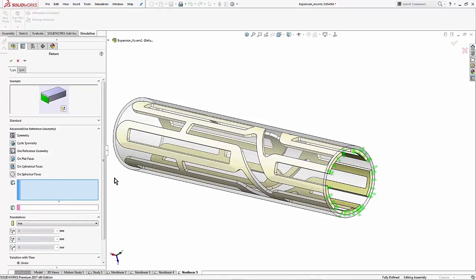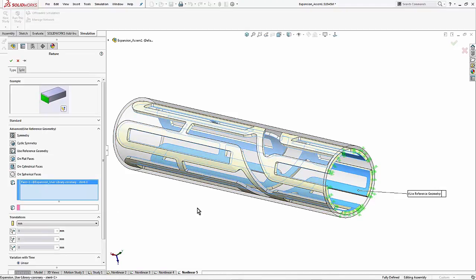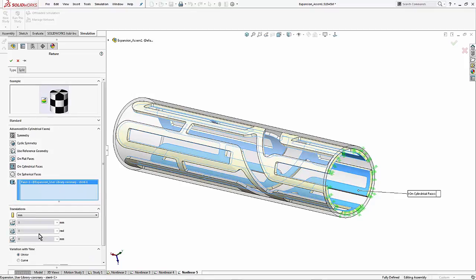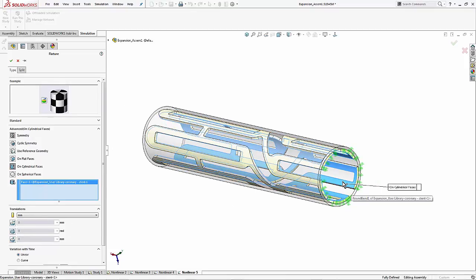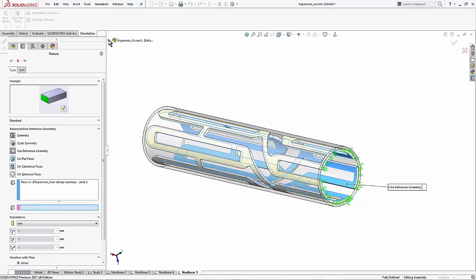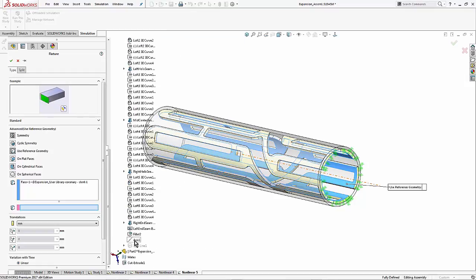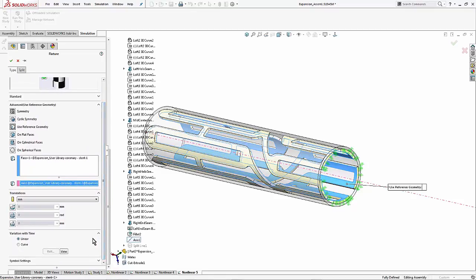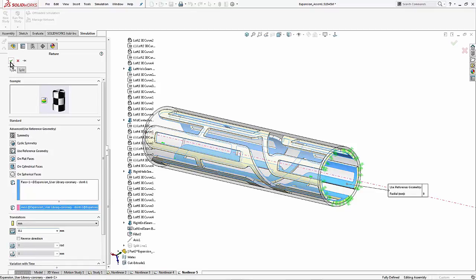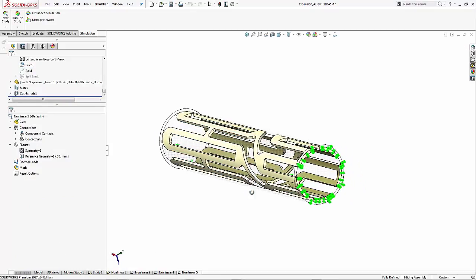To represent that we will use an expansion constraint. For that I've got multiple ways to do so. I could use reference geometry on a cylindrical face and then for this pick a face edge plane or axis to define the coordinate system, or use on cylindrical faces which automatically uses the cylindrical coordinate system as a result of whatever axis runs to the center of this cylinder. I could also define that axis again back in use reference geometry. This pink box is an axis I would have made myself. So clicking over to that axis converts my X, Y, Z into the cylindrical coordinate system. This first defines the expansion. Good. Exactly what I'm looking for. And then I could choose the others. Do I need to keep it from rotating or keep it from moving axially? Technically no. This expansion is enough to hold it in the Y and Z directions. So that'll be good.